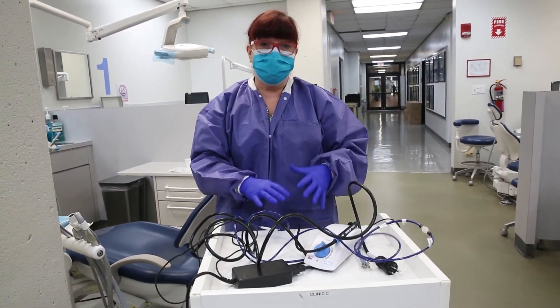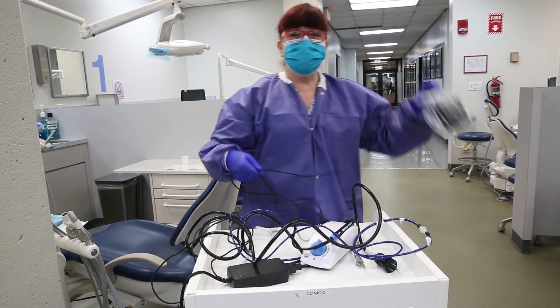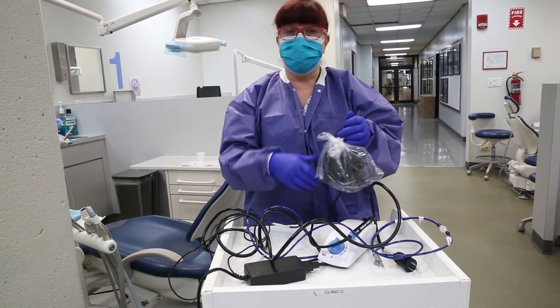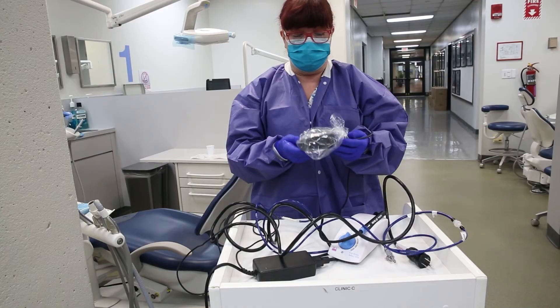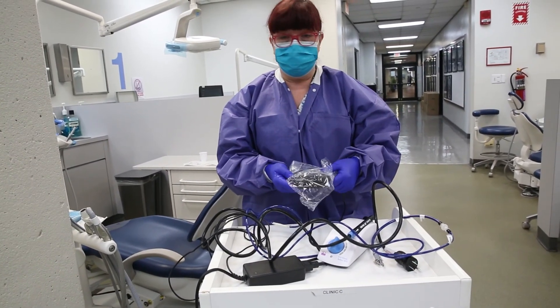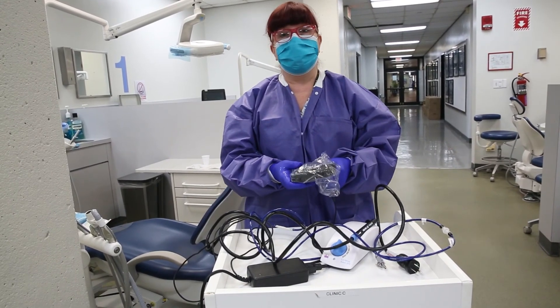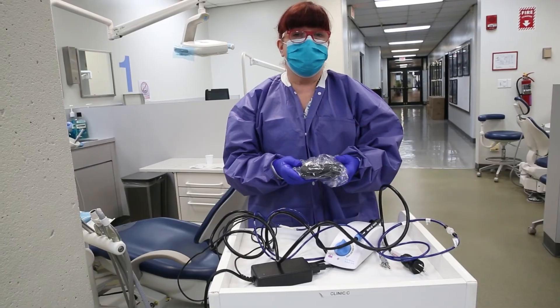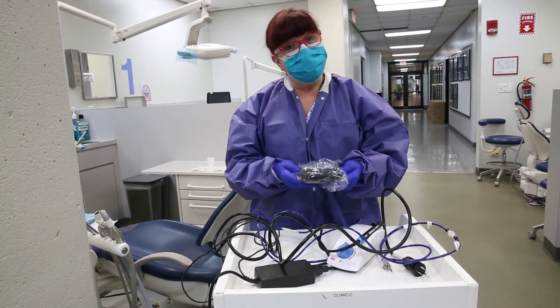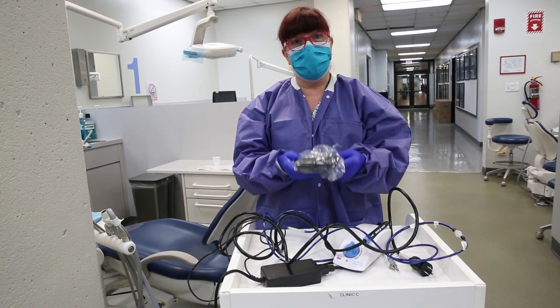You would clean the plastic box that it came in, take off the headrest cover from the foot pedal, put a clean one on it, place everything into the box, and return it to the dispensary and sign it back in. That's how we set up and prepare the tabletop unit for the magnetostrictive ultrasonic scaler, specifically for clinics E, F, and G — but if the bracket table unit in A, B, C, or D is not working, you can set it up there as well. Thank you.